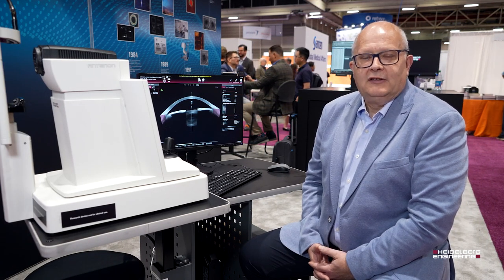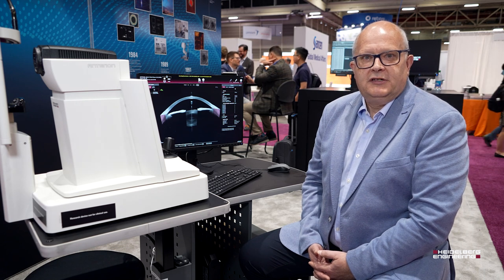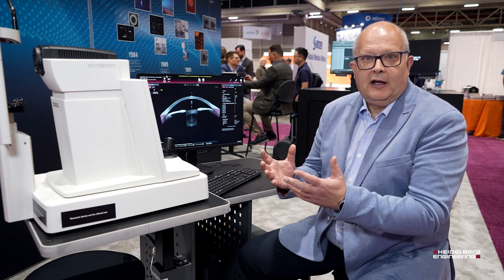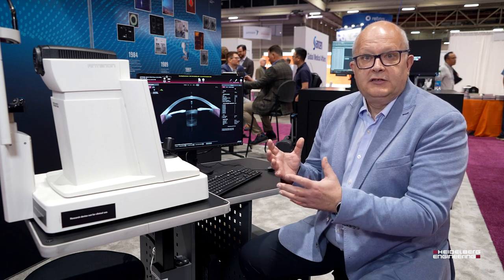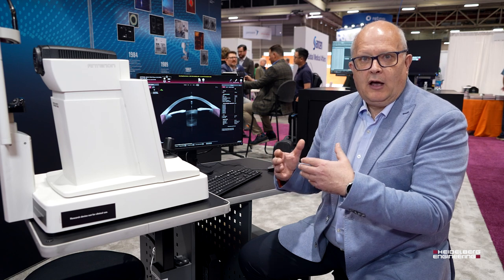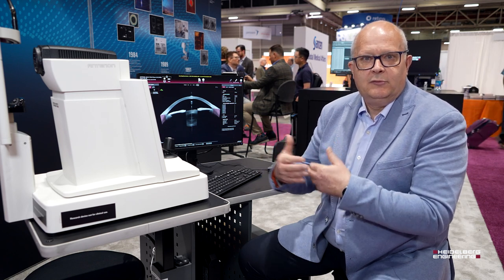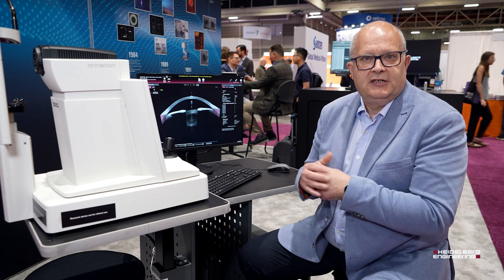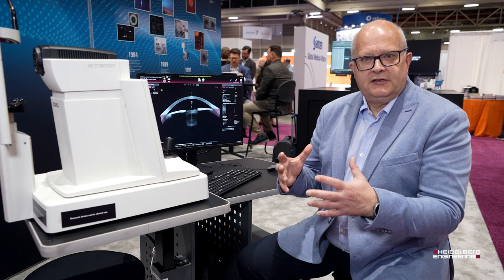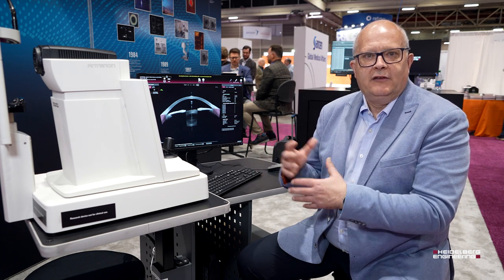Heidelberg Engineering has a long legacy in high quality imaging of the retina and we've used this experience to develop a high-resolution device optimized for the anterior segment. We have a wavelength that allows us to penetrate into the eye up to 14 millimeters and a width of up to 16 millimeters. The high quality images form the basis for rich data that we can produce directly from these images.